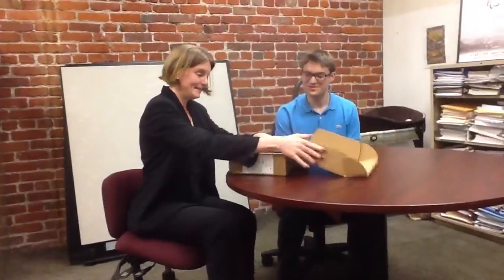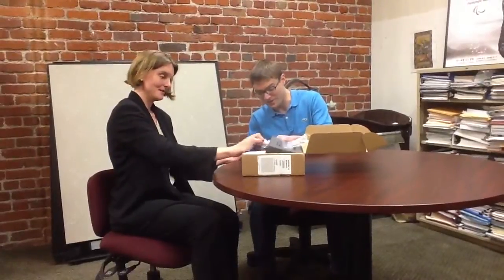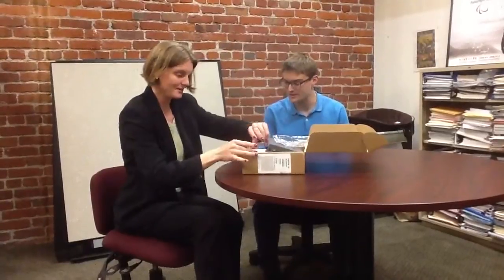I guess I don't need a knife. Nope. Ooh, ooh, foam. Oh, here it is. Ooh, look at that. That is compact. I'm really impressed. Refreshable Braille display, and they managed to have all the keys there. They seem pretty packed together. Oh, wow, that is very... It's got a case. Wow. Oh, look at all the plugs and stuff. Yeah. Oh, look, I think they gave us the plugs for all of the European adapters. Yay.